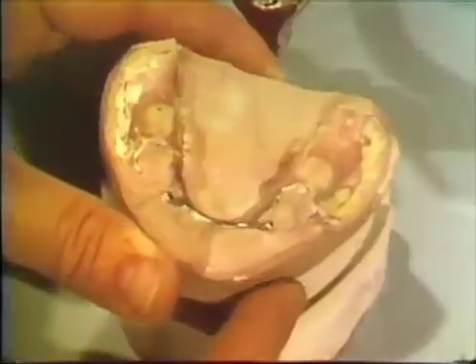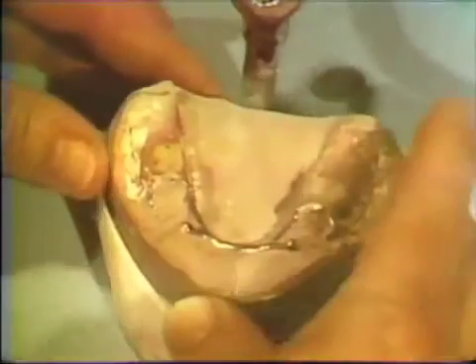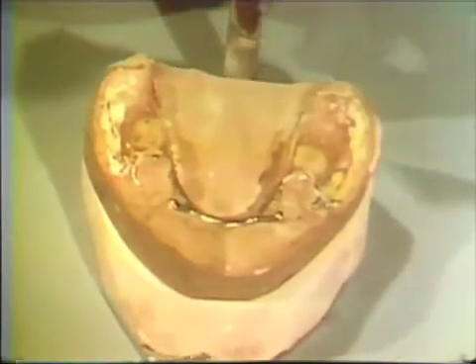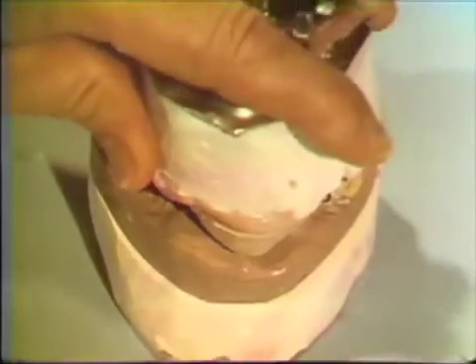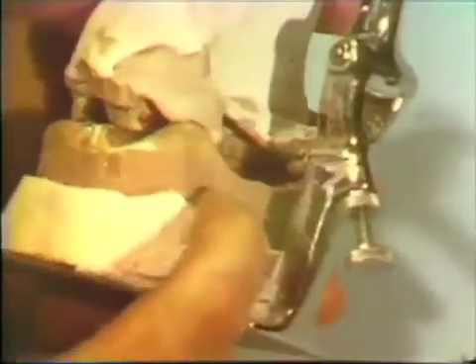When processing of the base resin is completed, the curing cast is returned to the articulator, and the degree of processing change which may have occurred during the flasking and curing operation is determined. Dimensional changes due to the processing of acrylic resin and dimensional instability of the wax used in setting the teeth manifest themselves by preventing complete closure of the articulator. These errors may be noted in both the position and prominence of the supplied teeth and in the resin saddle. The degree of change is evidenced by the openings in the occlusal stop areas.